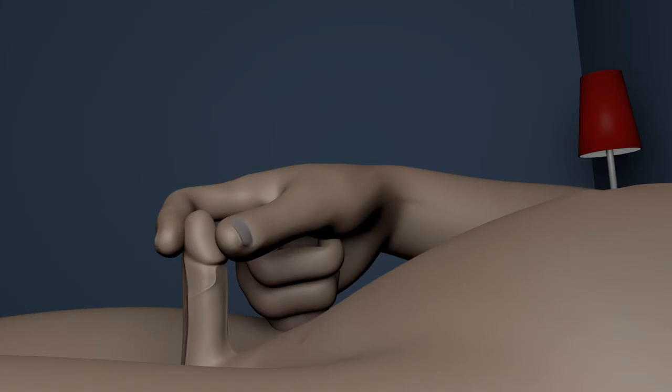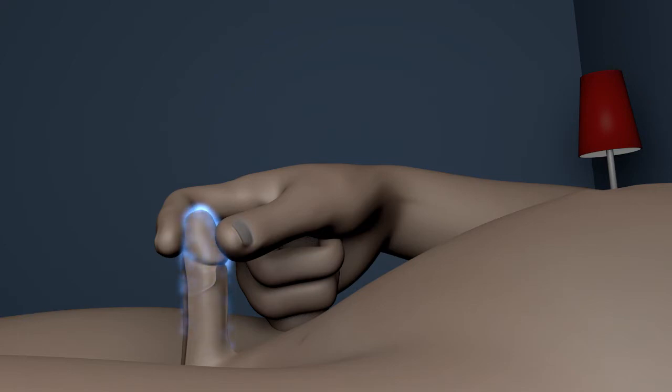To prepare the penis for vibratory stimulation, it is necessary to expose the nerve antennae that are located on the surface of your penis, especially the head of your penis.